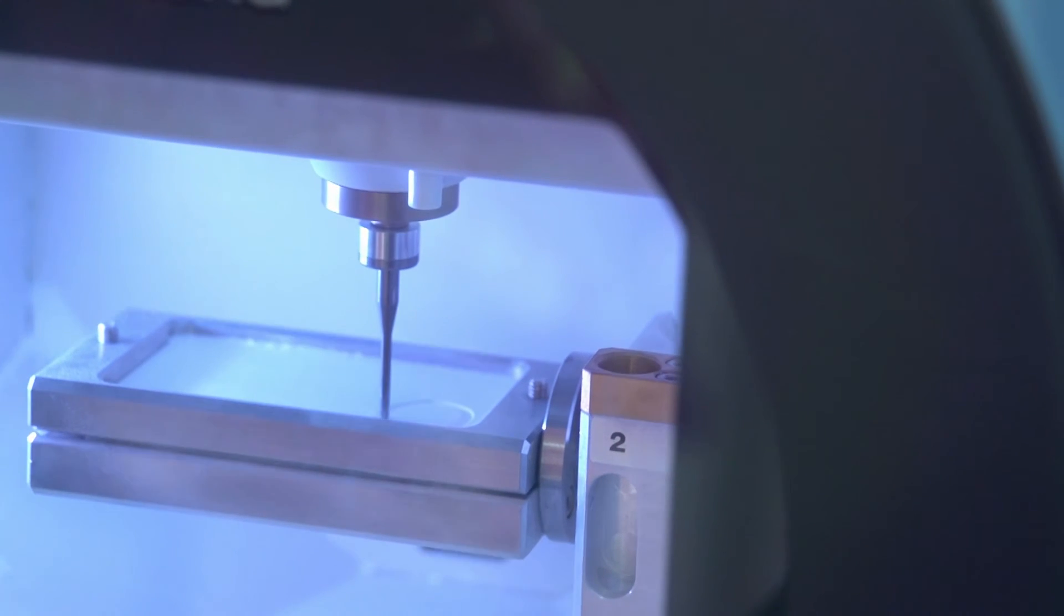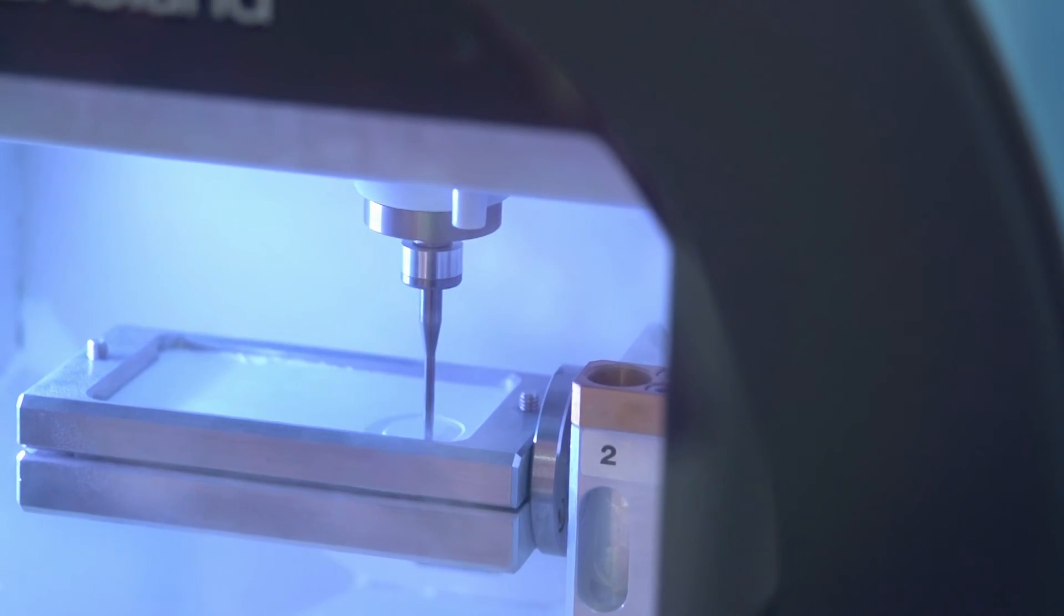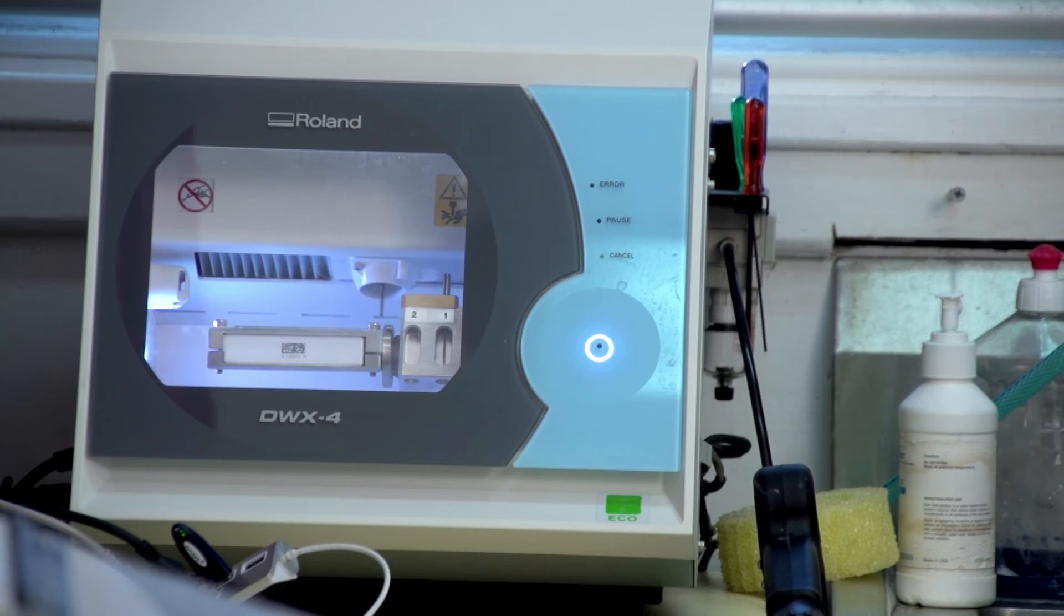I would definitely recommend the Roland milling machines to my dental colleagues because they represent both a solution that will add value to your practice, will produce predictable restorations, it will be reliable in its operation and also integrate well with their existing digital systems.